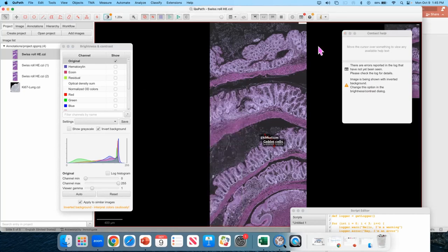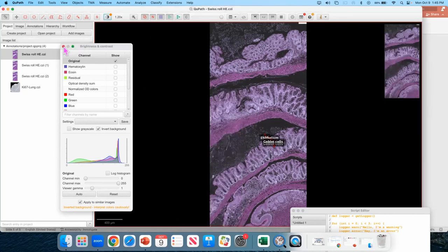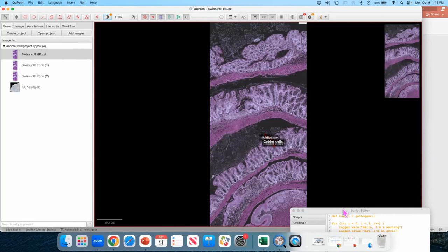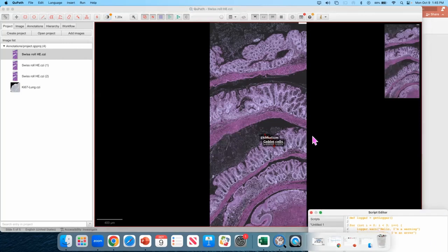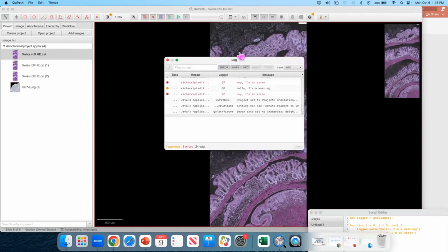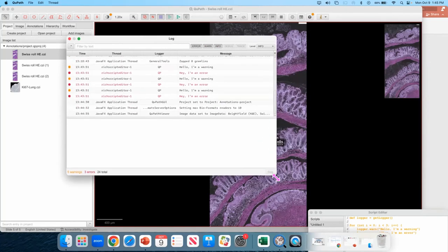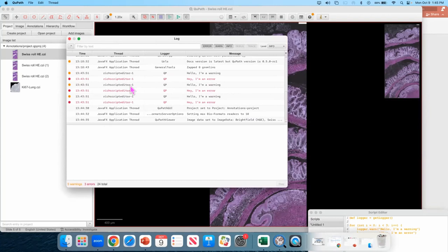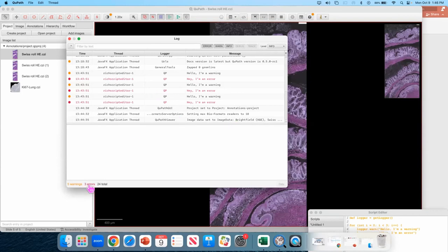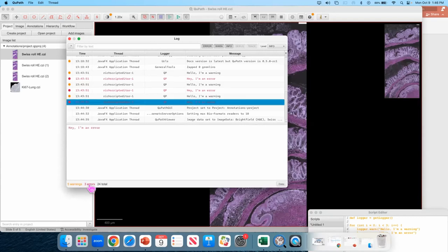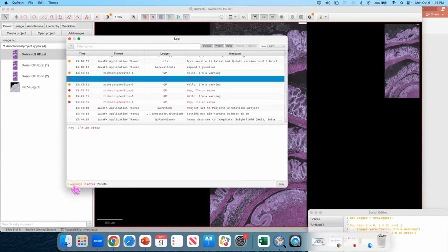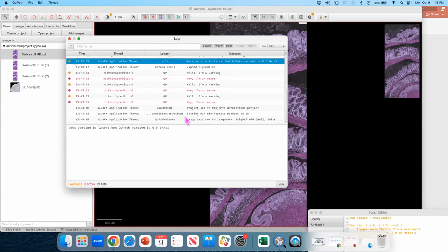Next up is when things do go wrong and you don't know what's happening. You want to reach out for help or even just look into it a bit further. We have the log tool here. This was developed by Leo in the QuPath team. What it does is it details what's going on behind the curtain in the software. You can filter through. I've made some artificial errors and warnings here just to demonstrate because I didn't want to count on there actually being an error, which normally happens in live demonstrations. But you can filter through and check through the errors just by simply clicking down here, the warnings. Additionally, you can filter what you're seeing using these presets up here.